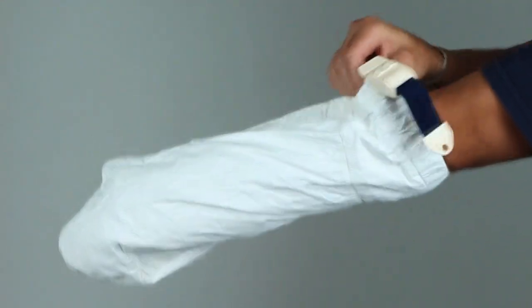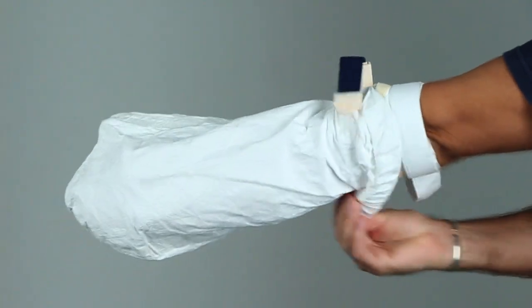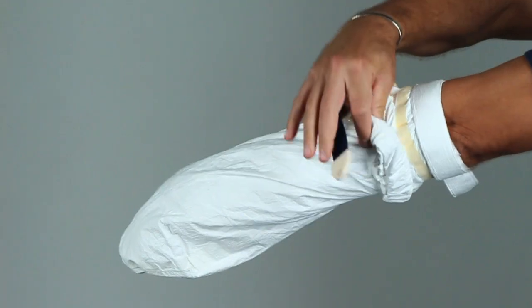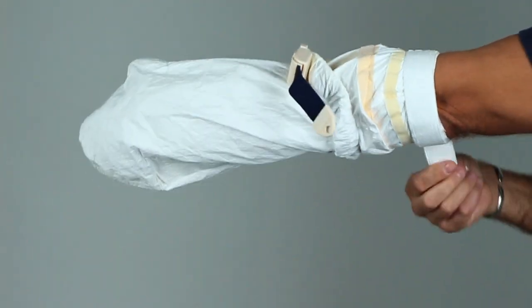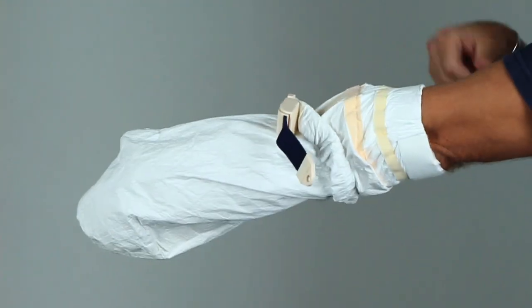Fold the cover down to expose the Velcro strap. Undo the Velcro and gently pull the cover off.